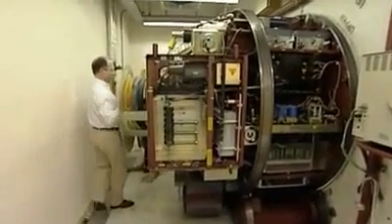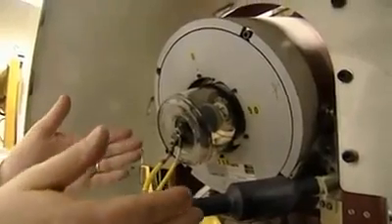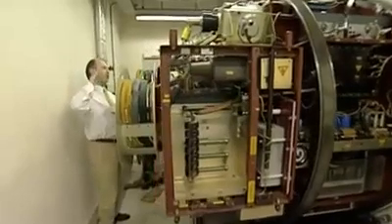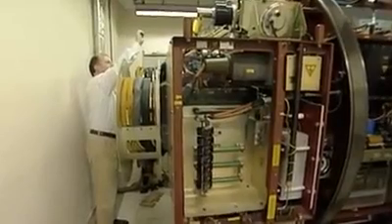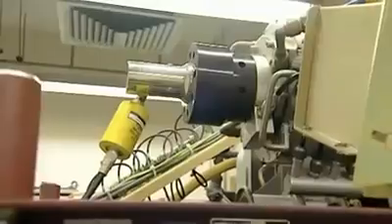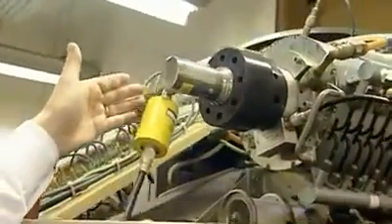At the back of the machine we have the electron gun, which is attached to the accelerating structure of the unit. This runs the whole way down to the bending magnets. Here we have the magnetron, surrounded by a water jacket.